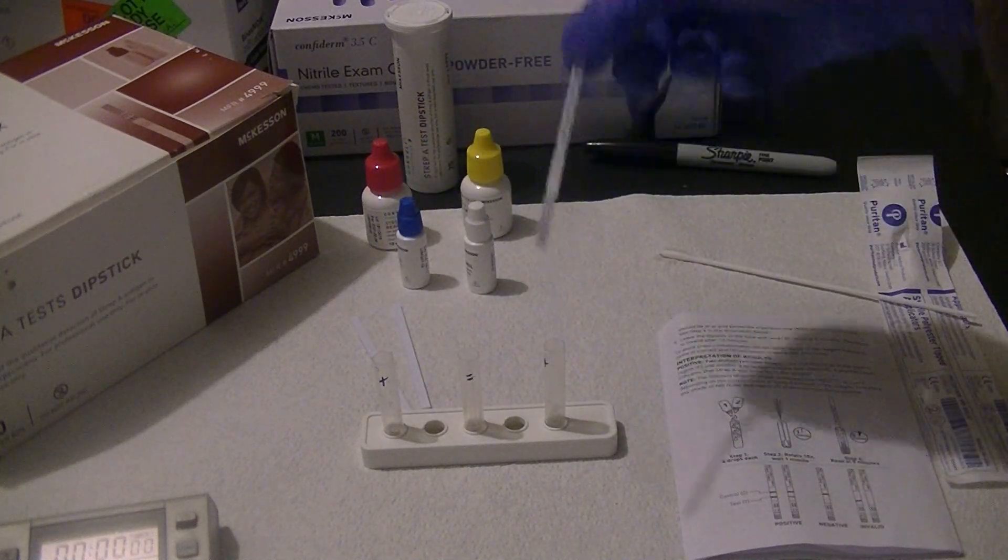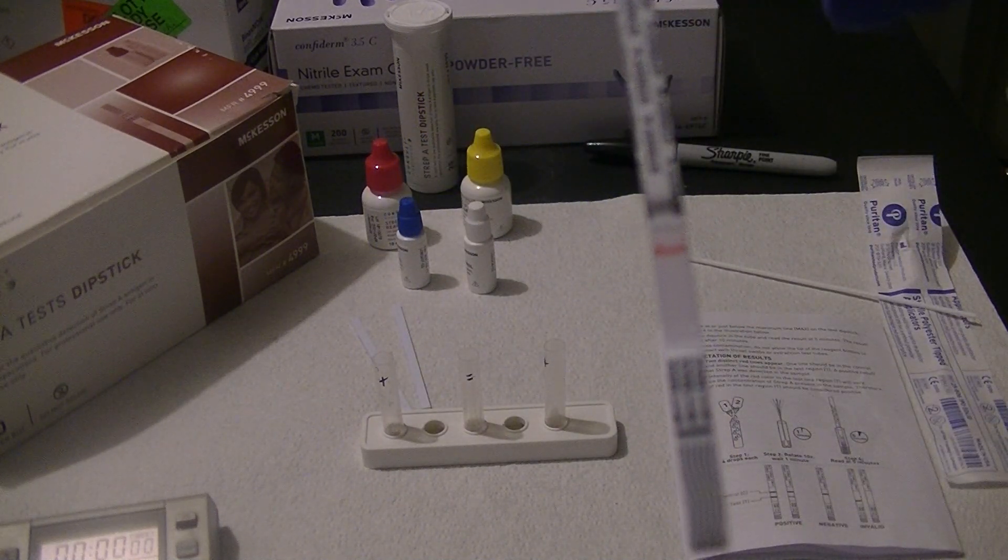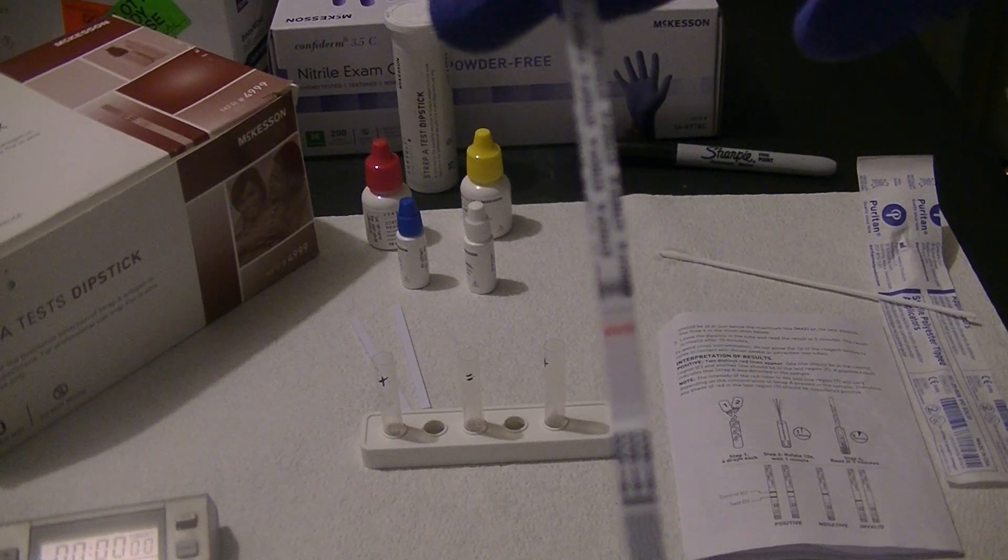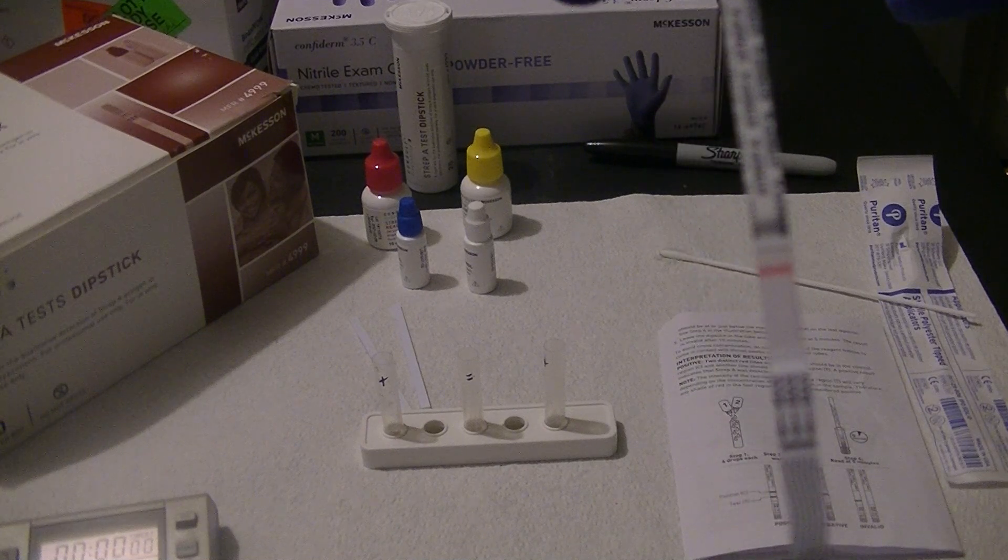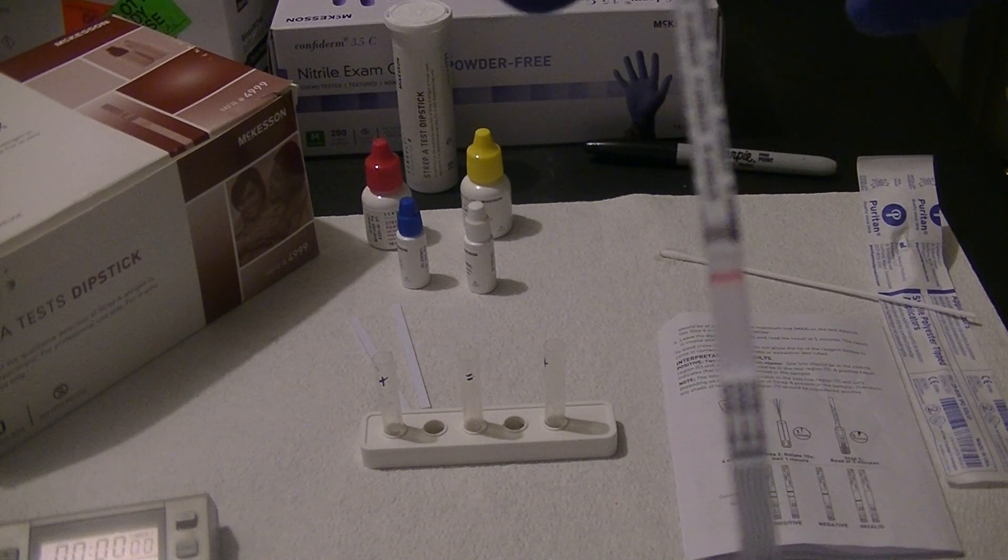And then last, myself. Do I have strep throat? The answer is no. I see a control line, but no positive line in the test area. So our patient is negative.